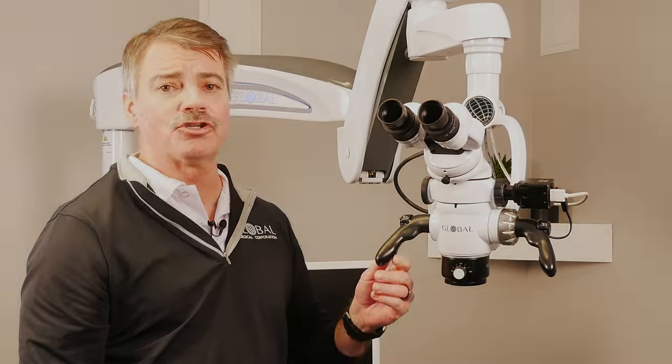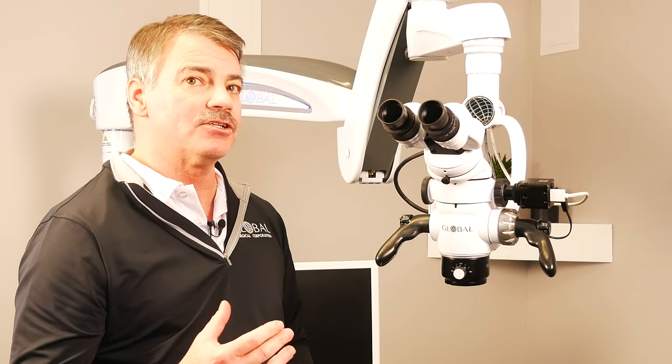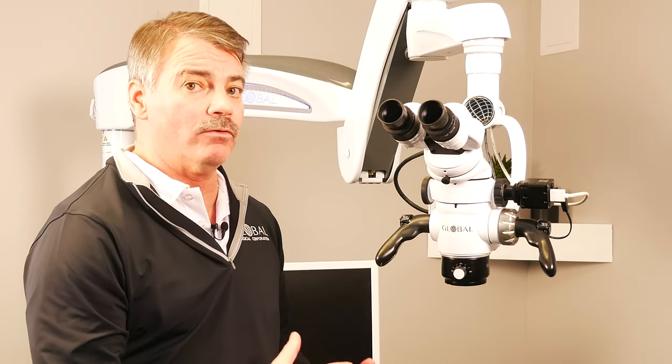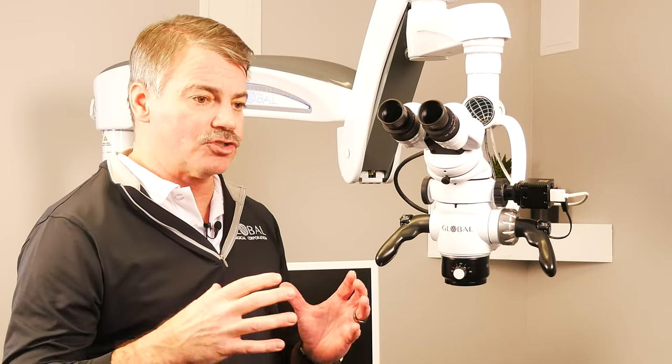The Global microscope uses 10x eyepieces, while others in the industry use a 12.5x eyepiece. Using 12.5x increases the bottom magnification available, so instead of starting at 2.1x like the Global does, they'll start at nearly 4x — losing that super wide field of view that many operators like to have, particularly when they're just starting to use the microscope.